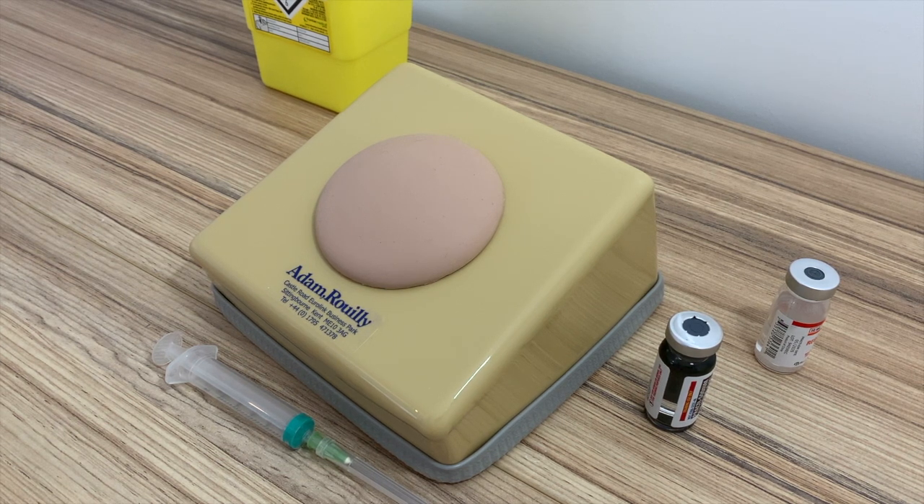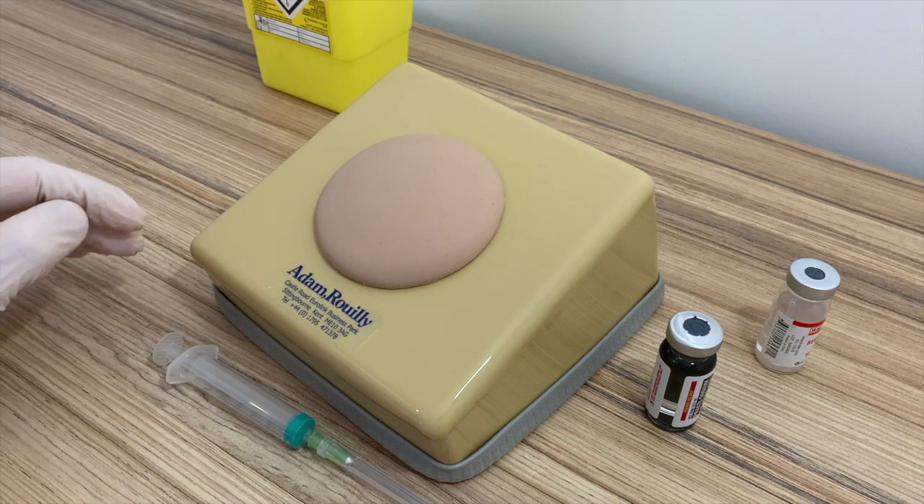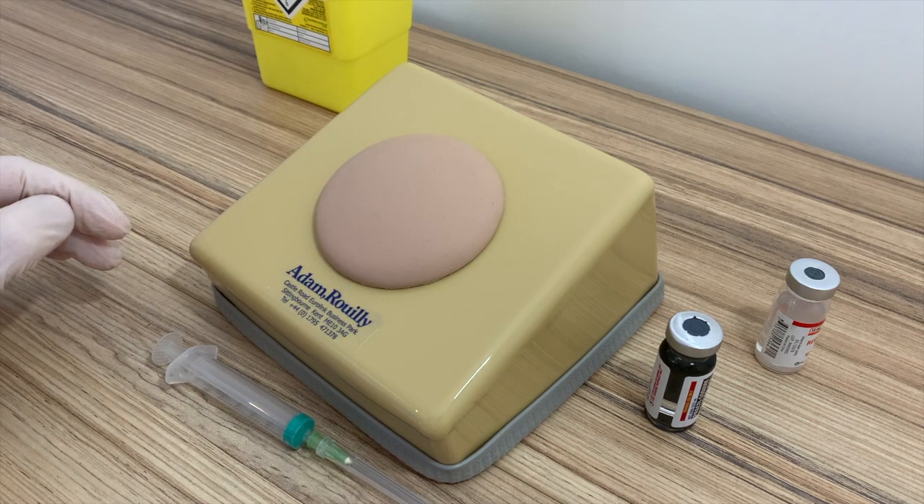You may already have experience with our best-selling AR251 Injection Arm Trainer, and this injection pad uses the same specially selected grade of silicon which is both soft and has the same self-sealing properties, allowing it to be punctured many times.